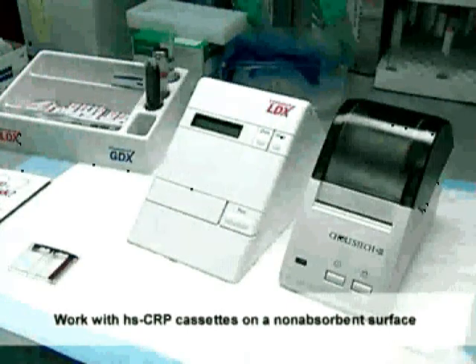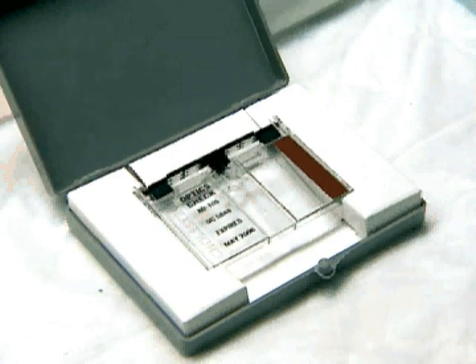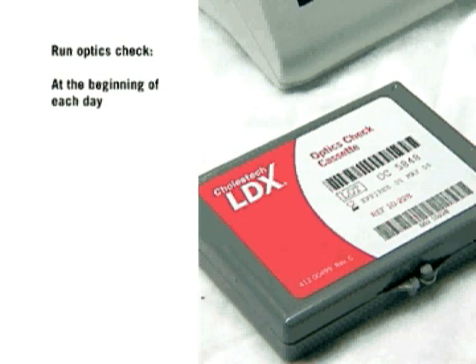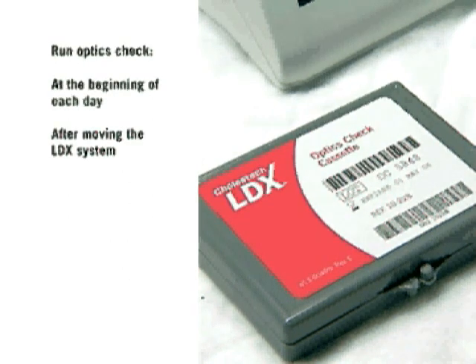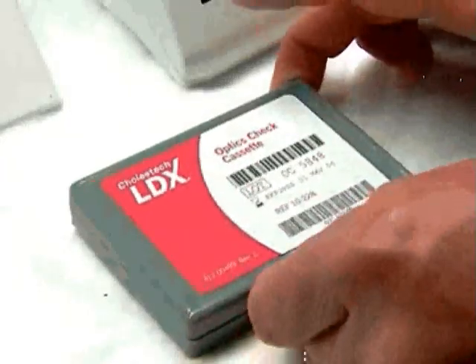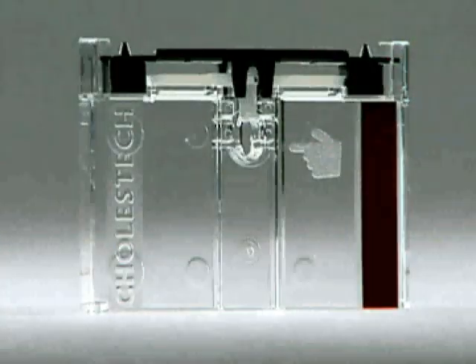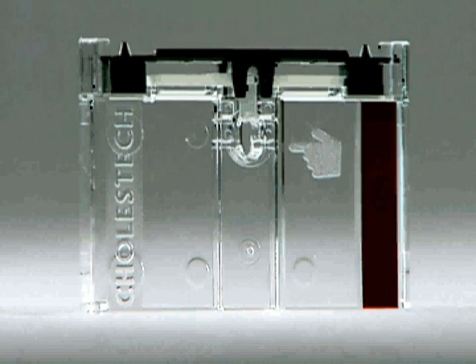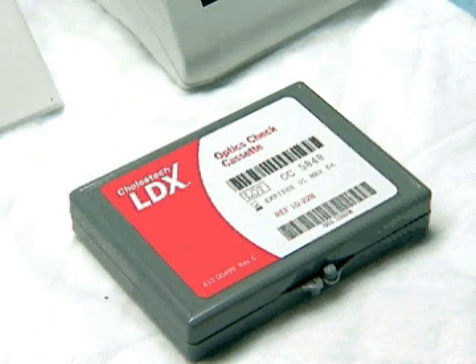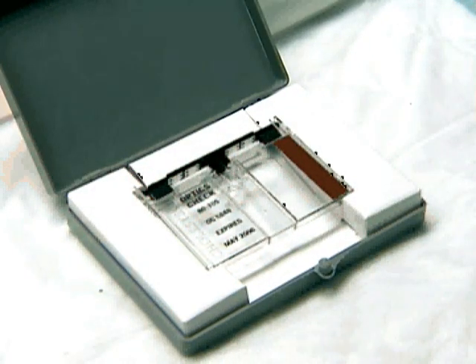There are four optical channels inside the Cholestec LDX system. An Optics Check Cassette confirms the correct operation of the optical system. It must be run each day before patient samples are tested and any time after moving or cleaning the system. The Optics Check Cassette should be kept in its case at room temperature when not in use. Do not touch the dark parts — only touch the clear portions. Keep it dry and clean. If it becomes damaged or wet, the optical readings may change. When your Optics Check Cassette expires or gets damaged, you must purchase a new one from your distributor.